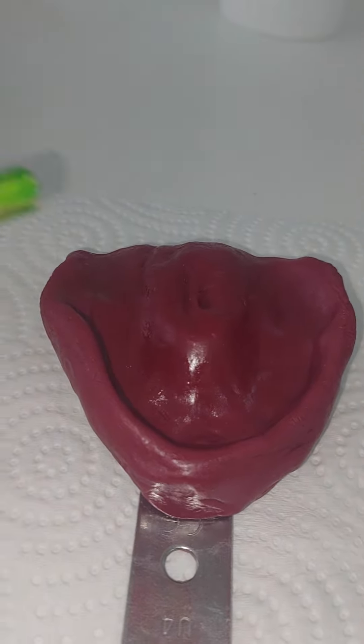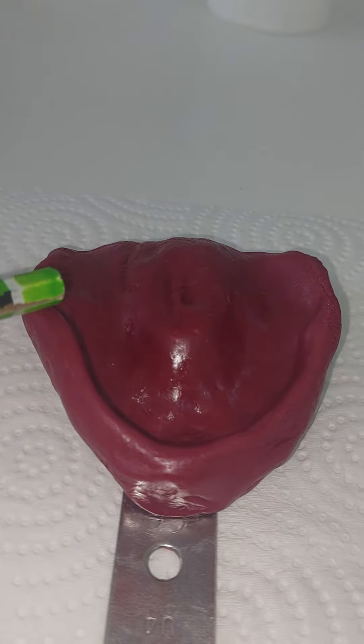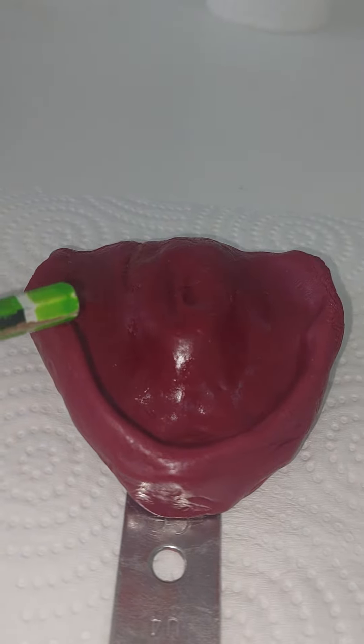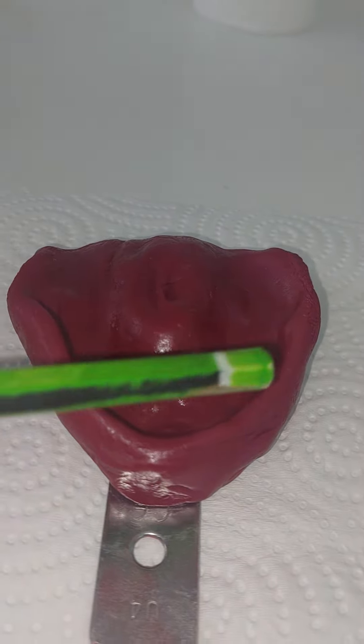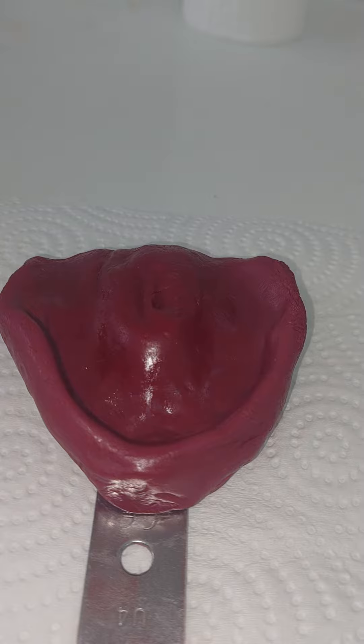First of all, we're looking for a roll of material. Do you think this roll is present all around? No.